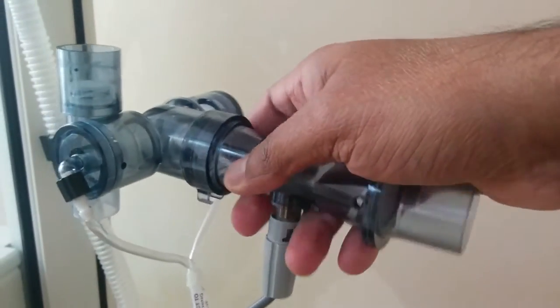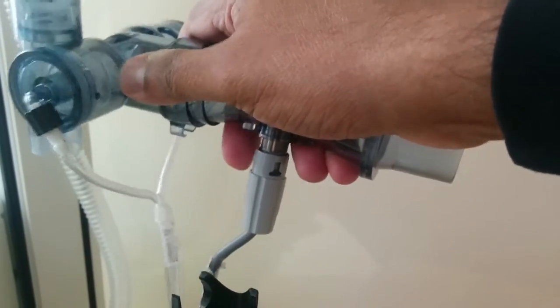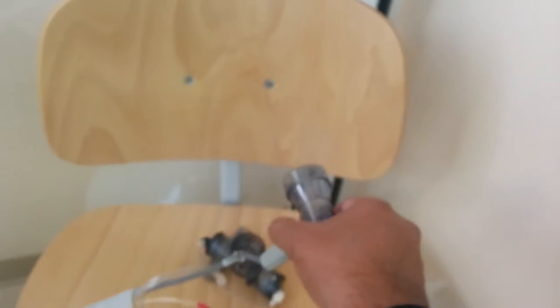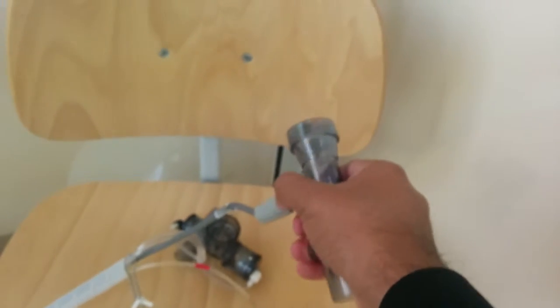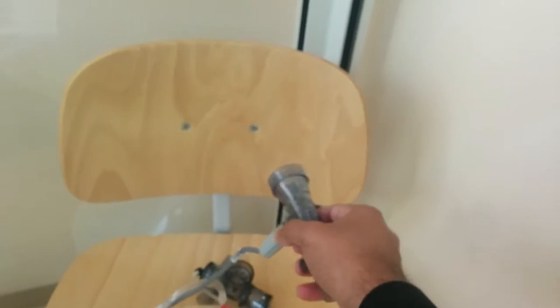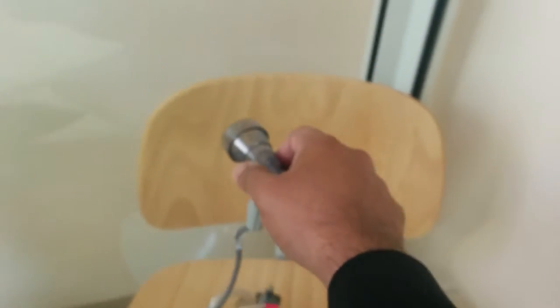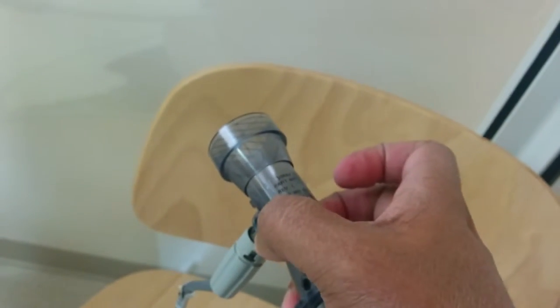You need to take it off like this. You can leave it here and you just have to press this and pull it down. It comes off. When you put it back, you have to be careful because there are grooves.